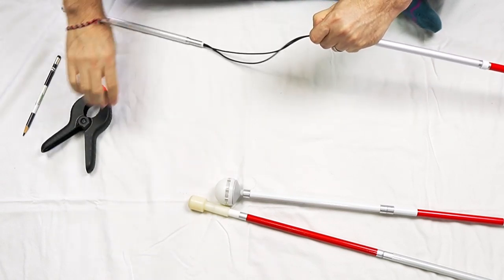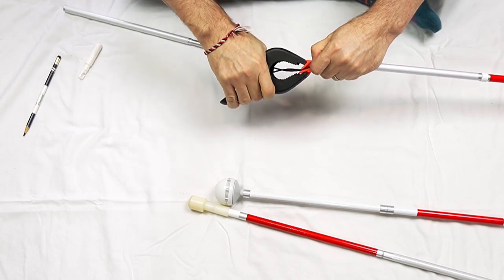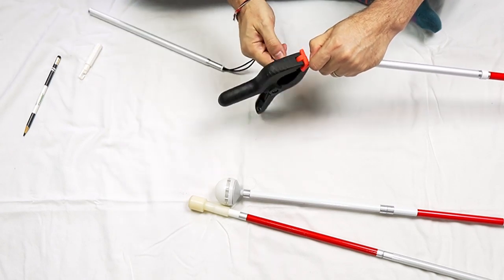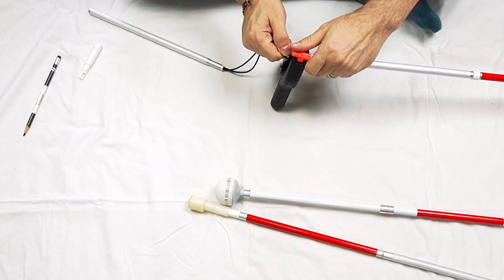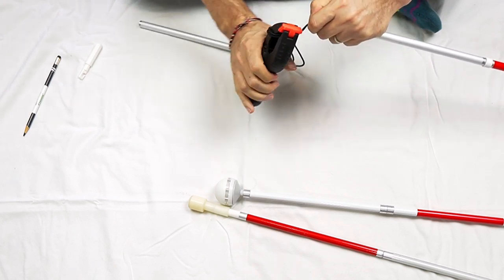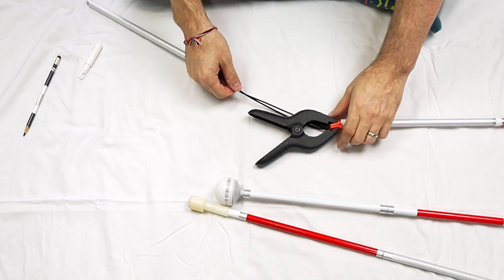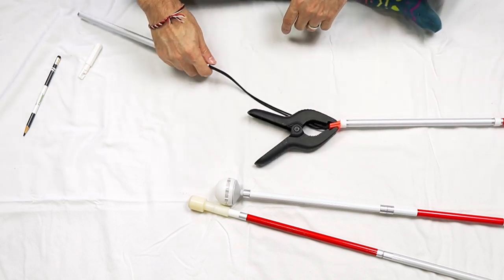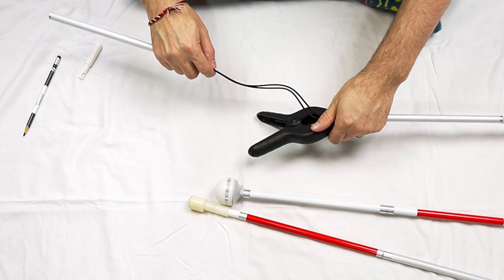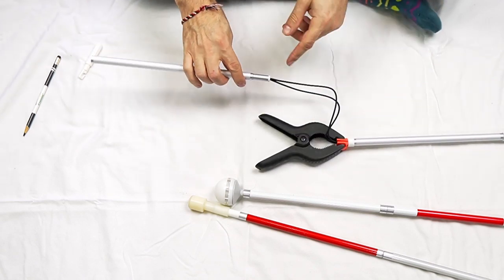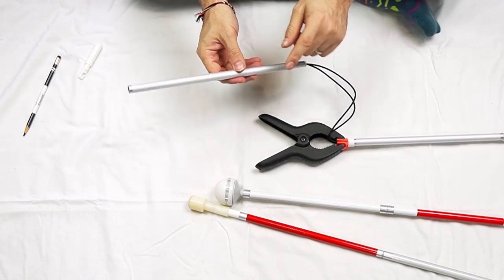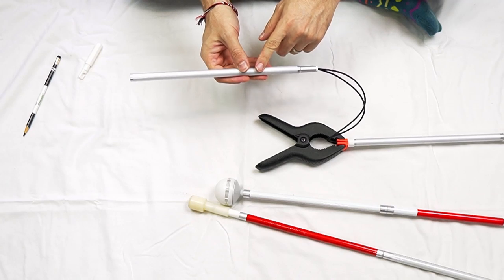Whoops. Slipped a little bit. Let's go back out. Use my clamp to clamp off that section. And I'm going to gently release it. I didn't clamp it all the way. So let's try it again. I think we got it that time. Yes. So we've got it clamped off and we have a section here. So I just need to feed this back through this final section of this last section of cane.